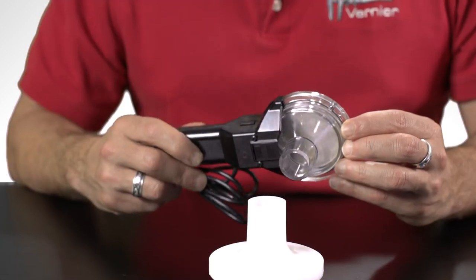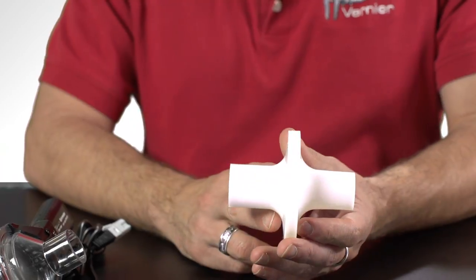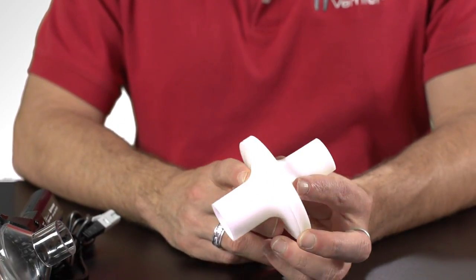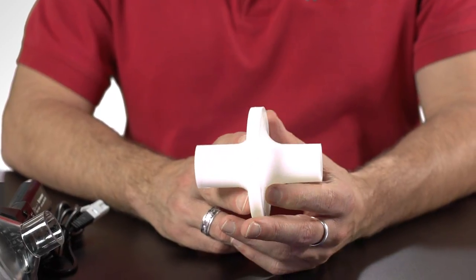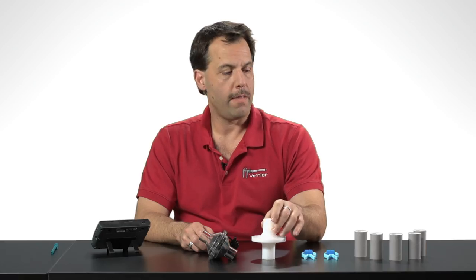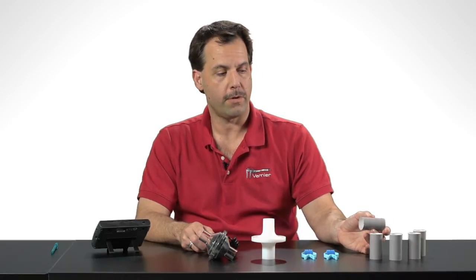Now if you're going to be breathing through a device, there's a couple things that you need to know. You need to keep the device sterile. So we have a little bacterial filter that comes with the kit and you can buy more of these if you want to. But that has to be attached to the spirometer.